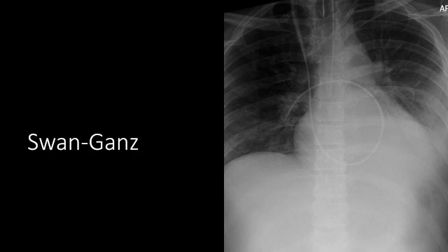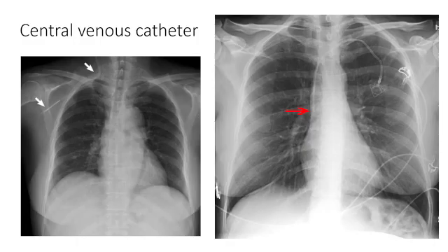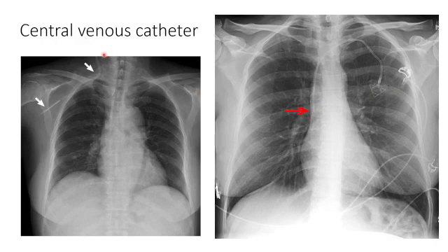The image also shows a vascular catheter coming in from the left IJ terminating in the proximal SVC, and an enteric tube in the mid-esophagus that is inappropriately high, as well as an ET tube above the carina. All central venous catheters need to terminate at the cavoatrial junction. This image shows a port catheter terminating in the distal SVC. The other image shows an IJ line that was misplaced — instead of heading caudad, it got into the subclavian vein and out into the axillary vein.